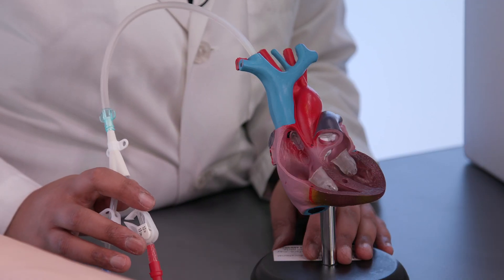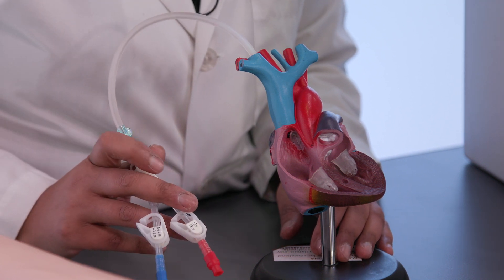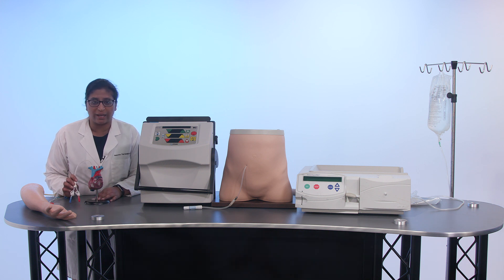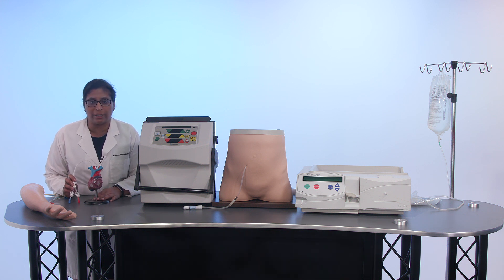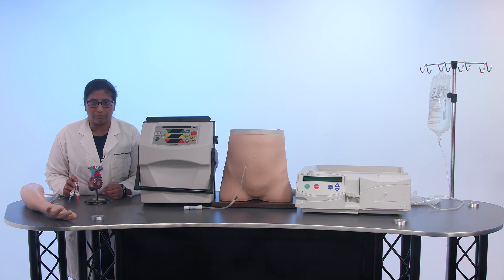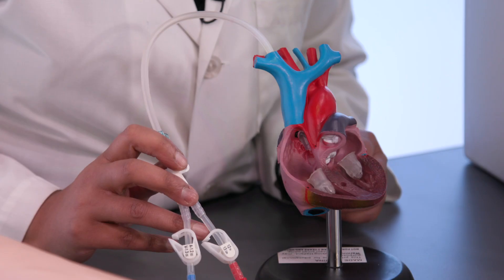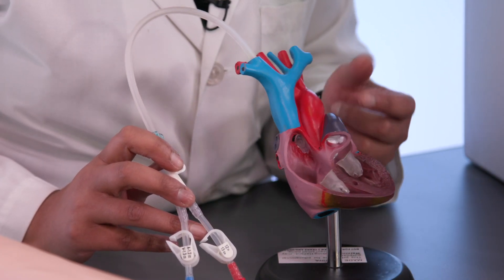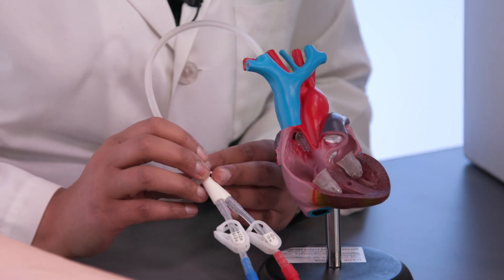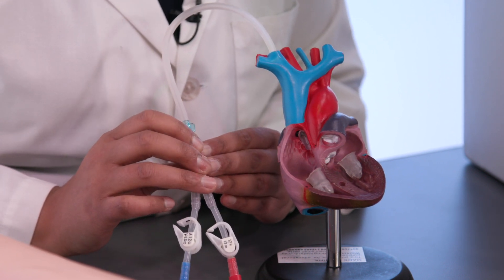The third type of dialysis access is the hemodialysis catheter, which can be used right away. This catheter must be a larger size than typical IVs you get in the hospital or emergency room, big enough to carry sufficient blood flow for the dialysis treatment. Because of that, it goes into one of the larger blood vessels, with the tip typically reaching all the way to the level of the heart. A large portion of the catheter remains outside of the body, which is where the increased risk of infection comes from.